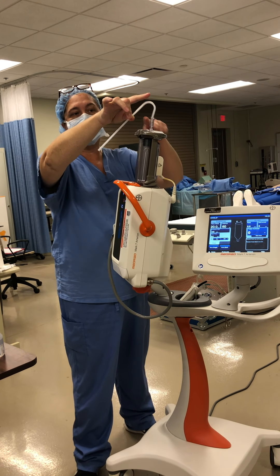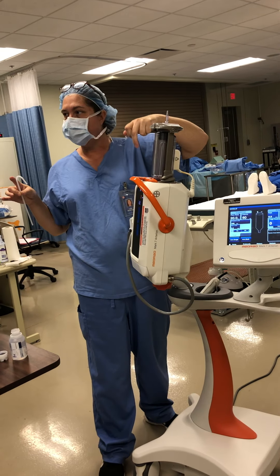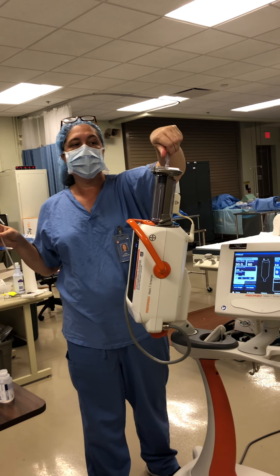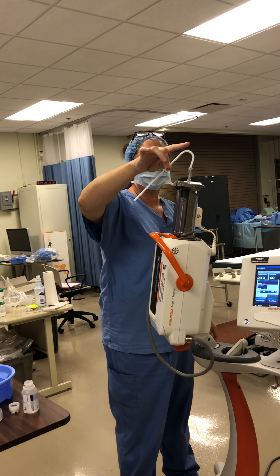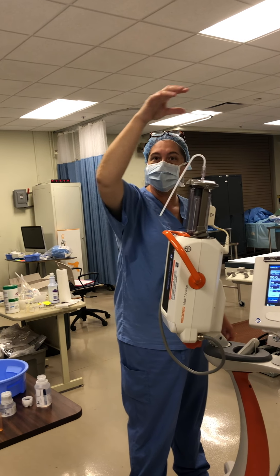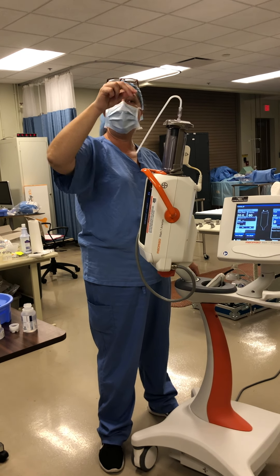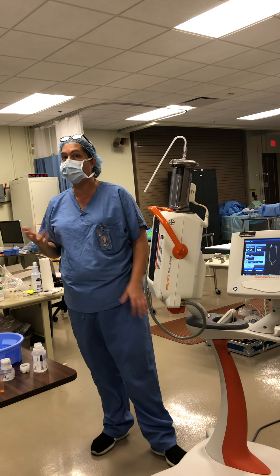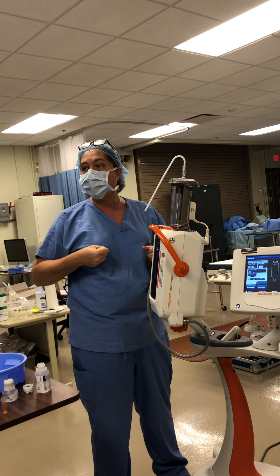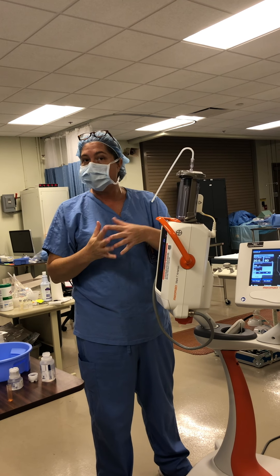Then we're going to come over and put it on — again, we can't touch the tip. There's a little nipple part. Underneath it's almost like a little male end, and that's what we're actually attaching the straw to. You want to see how I'm keeping my fingers back? I don't have my fingers way down here, because if my finger slips I just touched and contaminated it. If I'm back here doing this and I happen to slip off, I have less chance of hitting the tip and contaminating it. Another very focused detail on how you're doing this. You don't have to jam it on so hard that it's hard to get back off — just make sure it's on there secure enough that when you draw in the fluid, it stays on.